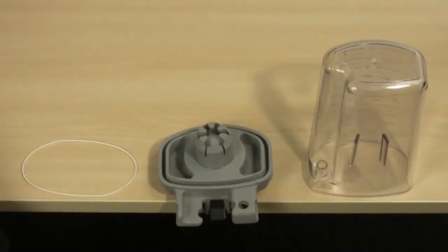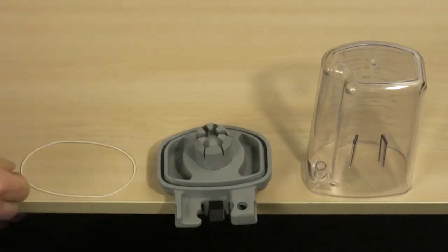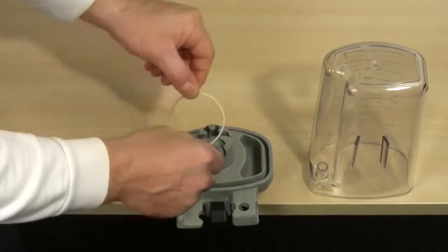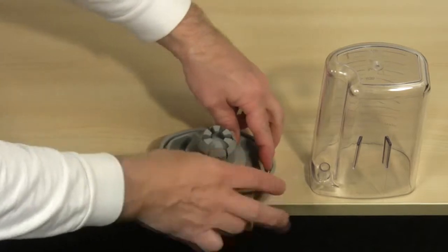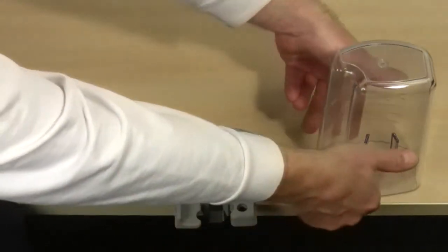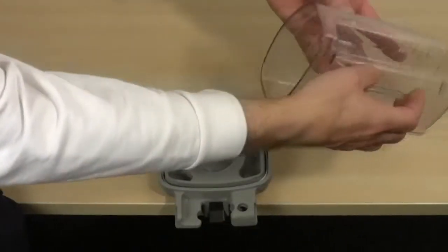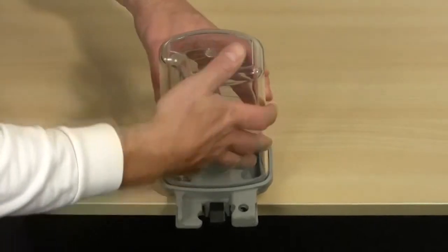After the hygienic conditioning, put the canister cover upside down on the tabletop to make reassembly easier. In the next step, put the white sealing ring in the grooves of the cover and press it into place. Then press the canister into the grooves until everything fits tightly.